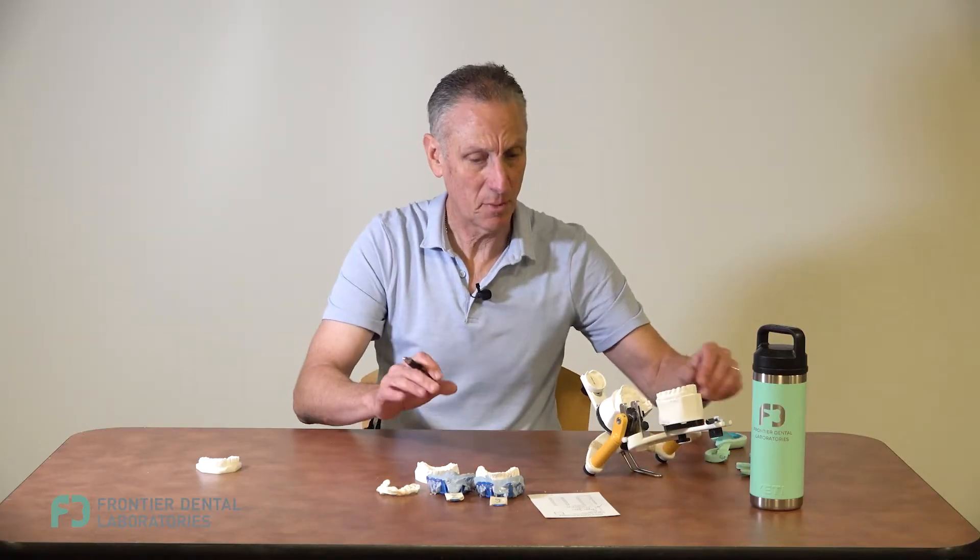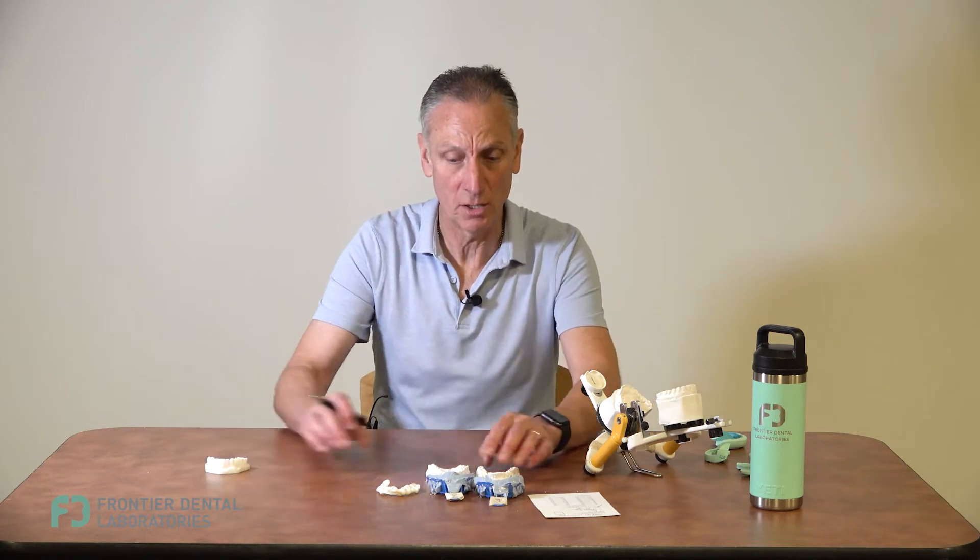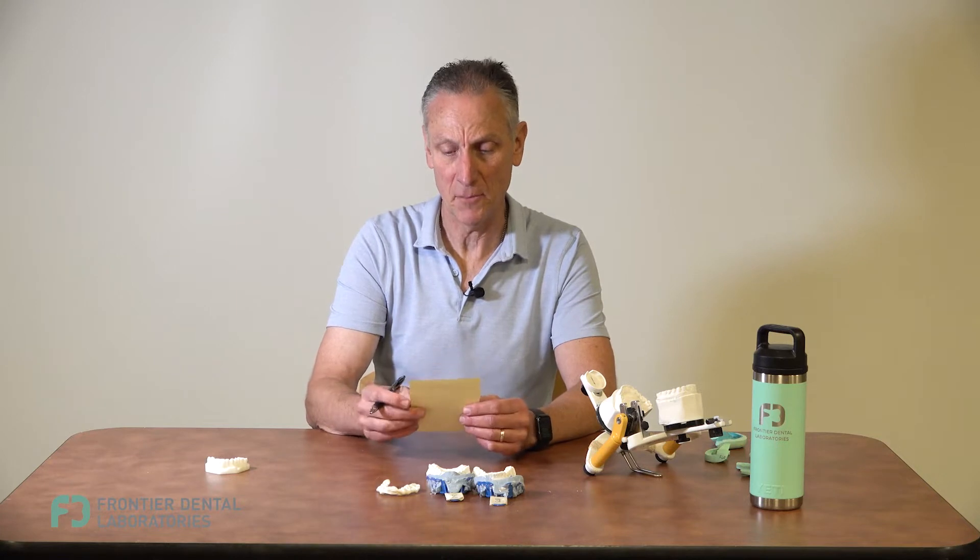When you get your diagnostic back you'll get all of these models, and we also start off with a tissue alteration form. We will adjust the tissue heights as we see fit, up to about one millimeter, because we don't want to get into biological width violations. If you want more or none at all, just let us know — you will find a tissue alteration form in your case.